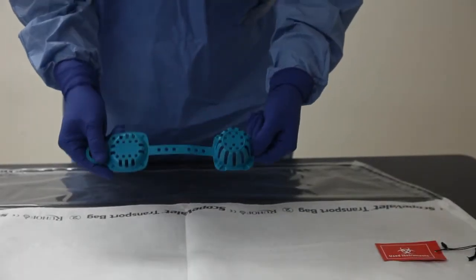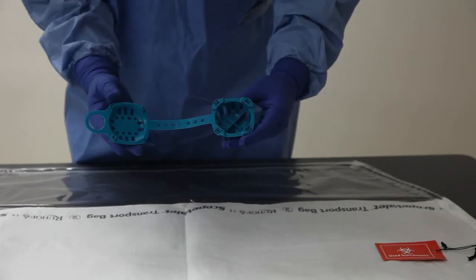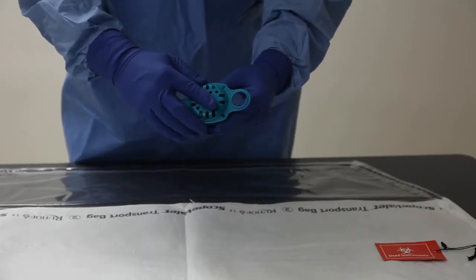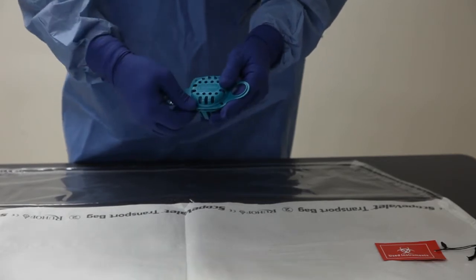Now, let's take a look at the ValveSafe design details. First, it's single-use and cannot be reused, which aids in the reduction of cross-contamination.